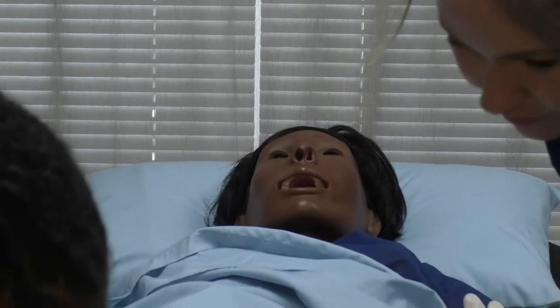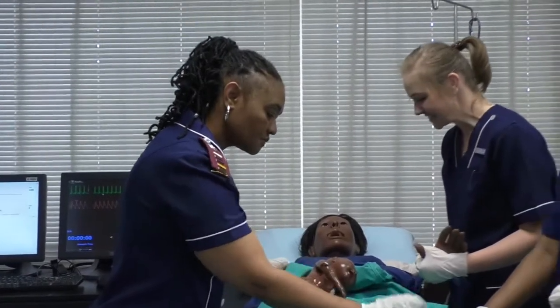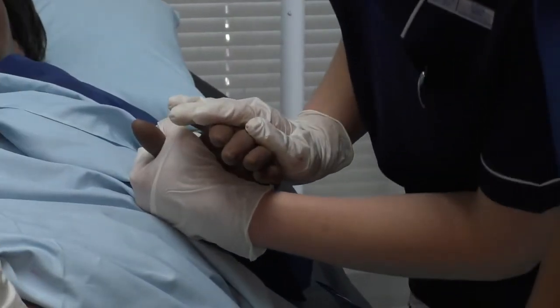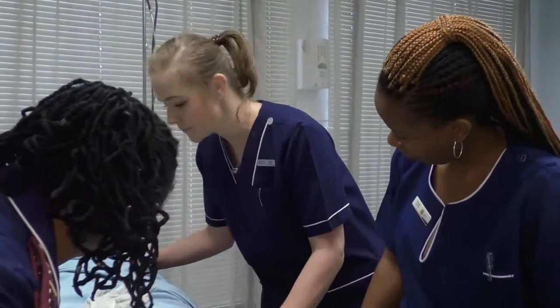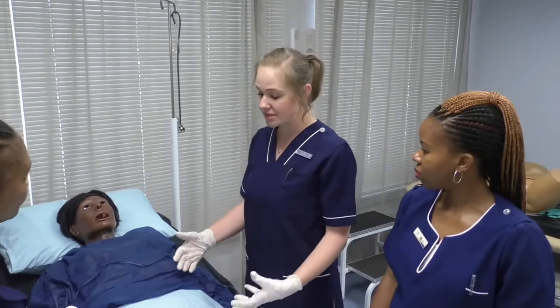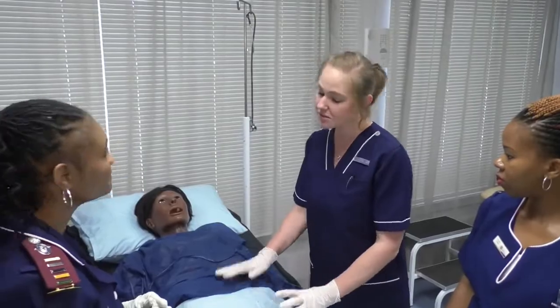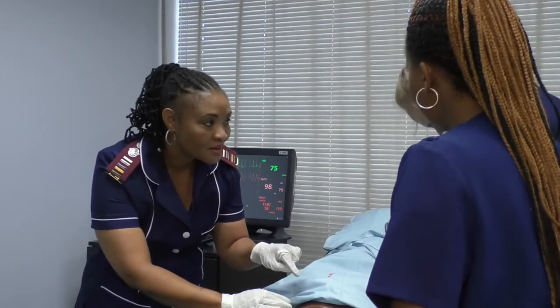One of the main advantages of simulation is that the simulator reacts to students' interventions. The student and the simulator have a conversation and the student engages with the nursing process faster. Simulation is not just about skills training — it is also about giving the students the opportunity to practice their interpersonal nursing skills.